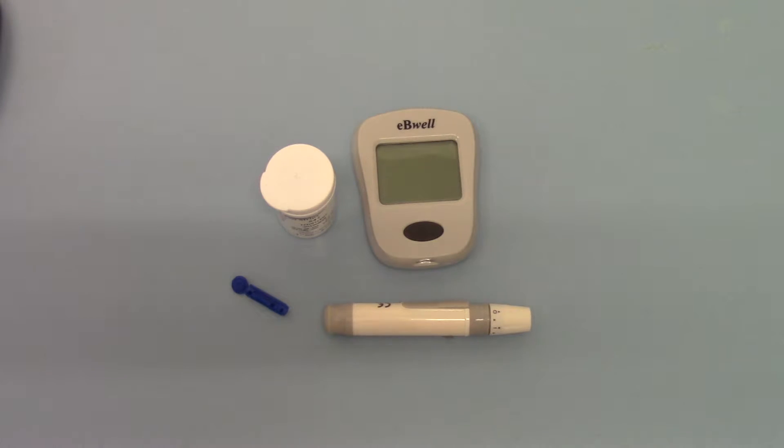Welcome back to this final part of the EBWELL EBW01 blood glucose meter product demonstration. I hope you've watched the first couple of parts of these videos demonstrating the complete setup of this meter. It only has to be done the first time the meter is delivered.